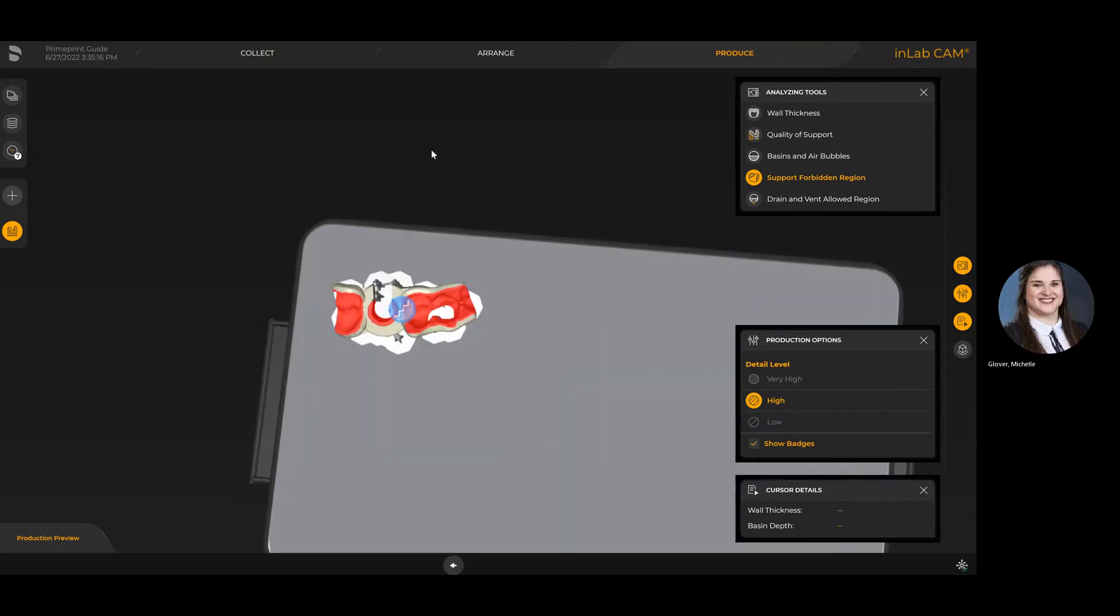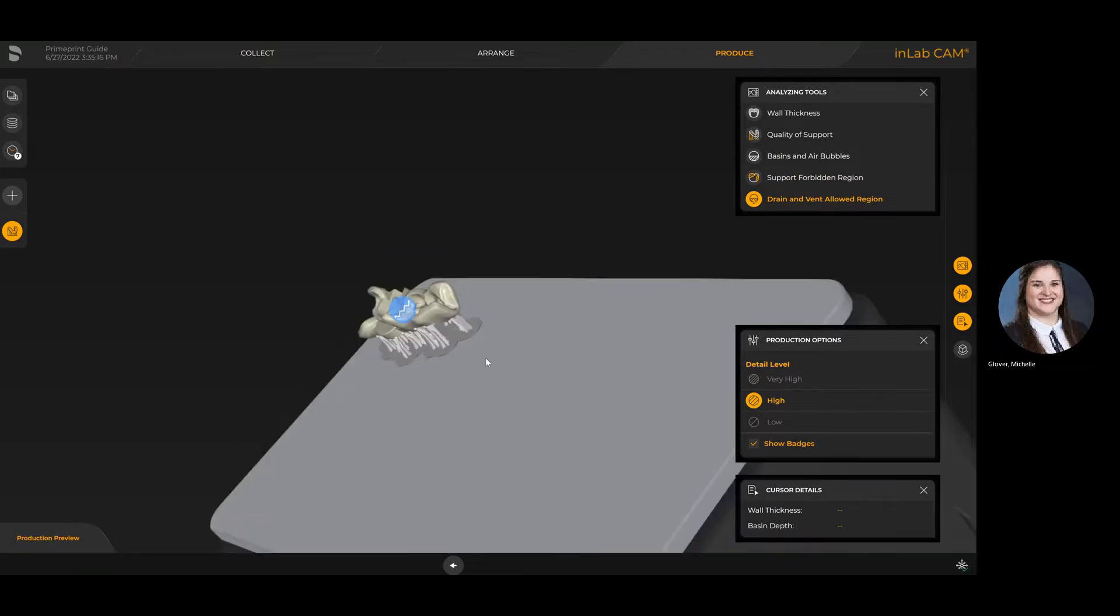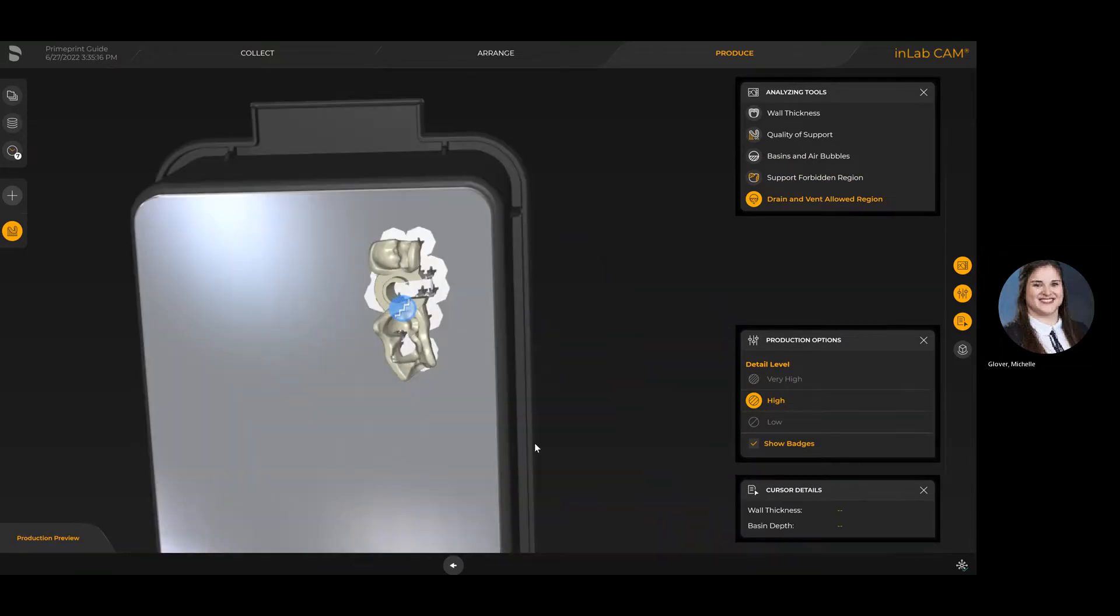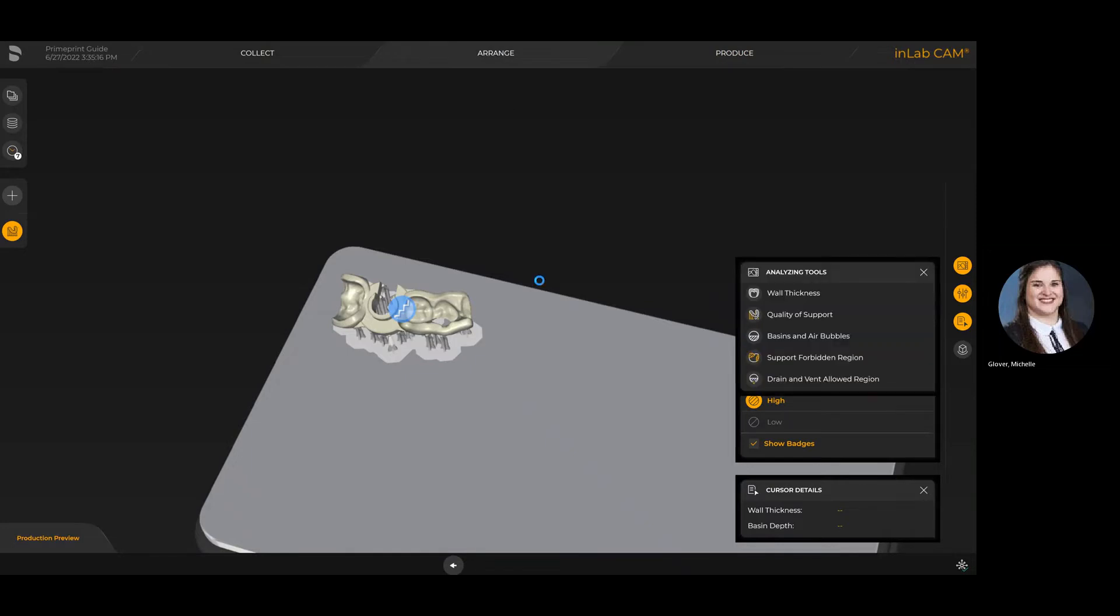I can even see here that the system has not supported any forbidden areas such as the surgical site. It's a really nice way to save a lot of working steps in the CAM lab software by using that fast-forward option which takes you directly to the produce stage.